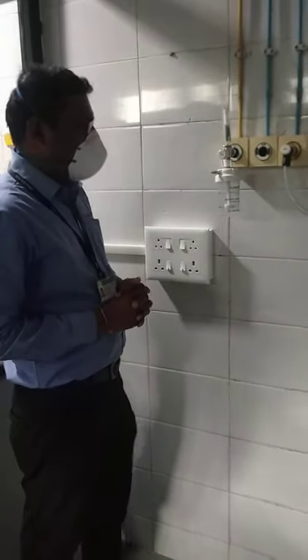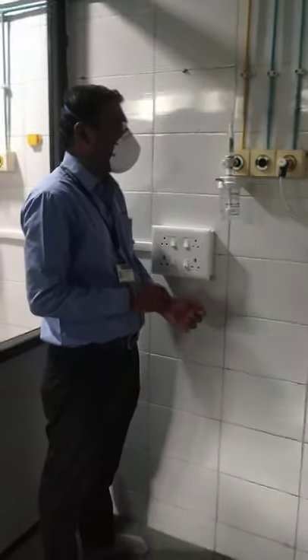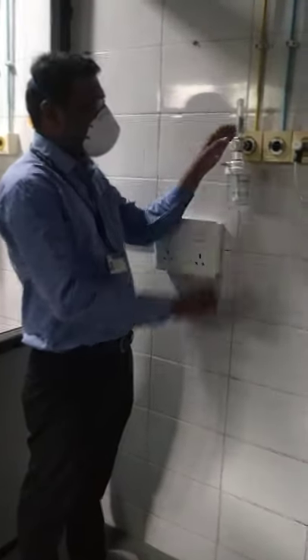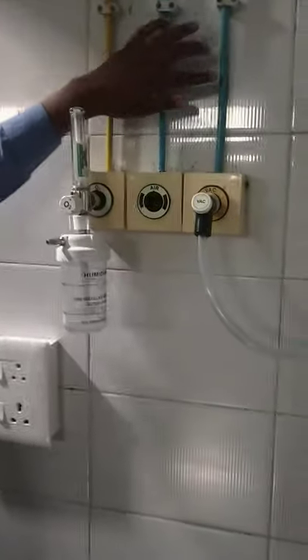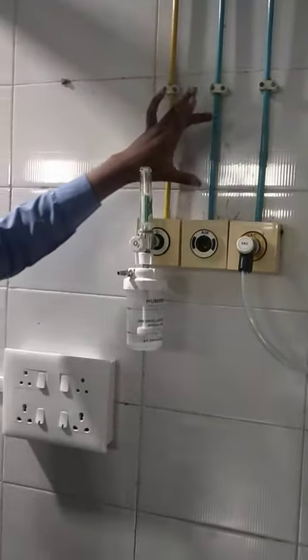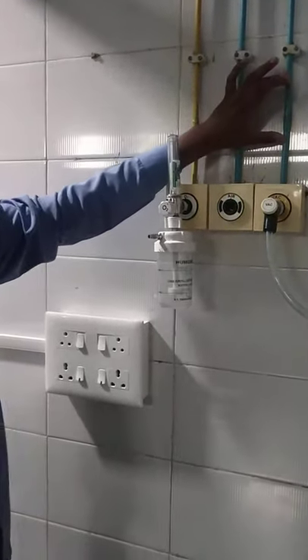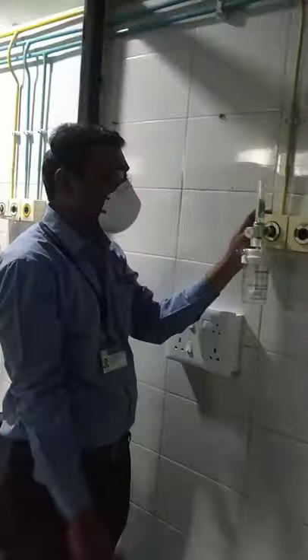I am going to give a brief introduction on how to use and do basic maintenance of the humidifier. In each and every ICU you can observe three lines: one is oxygen, second one is air, and third one is vacuum. This is called a central gas pipeline. Today I am going to tell you about the oxygen line.